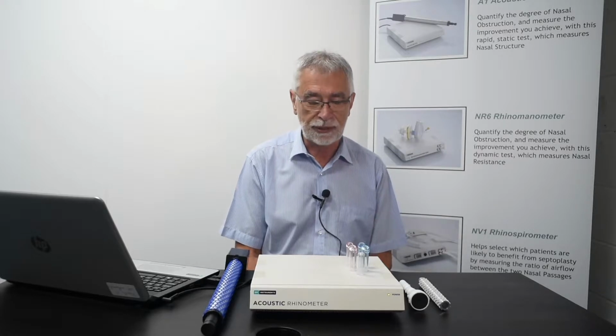I formed GM Instruments 25 years ago, and among the products that we've supported in that time is an acoustic rhinometer, which I'd like to take you through today.